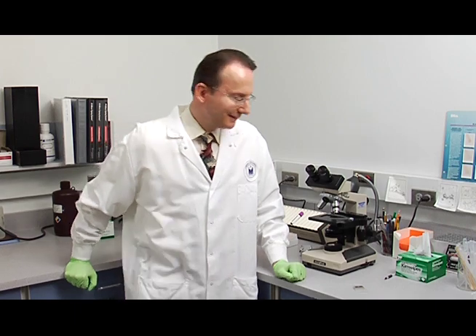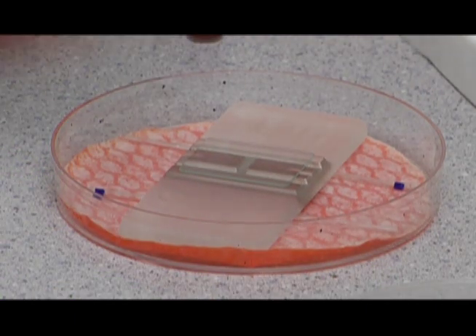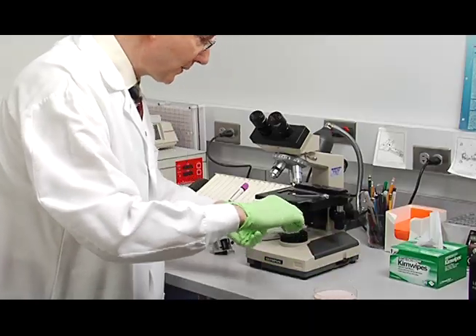Now we're ready to count the white blood cells on the microscope. First, place your hemocytometer and carefully take it out of your moisture chamber.